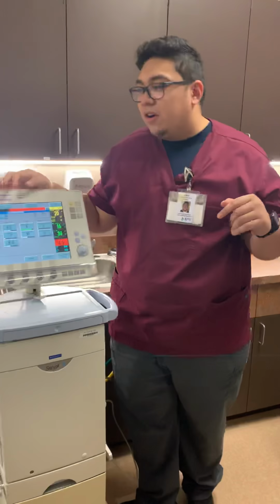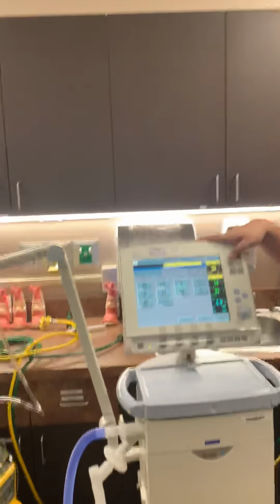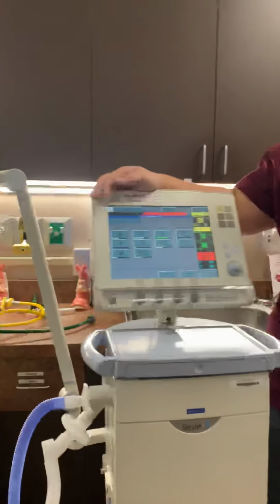Great, thank you. So we've got this one. We had this one. It doesn't have the software Bivent. It's a little bit older, the dinosaur. This one does. So we're in Bivent right now.